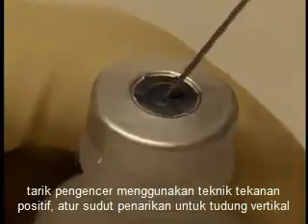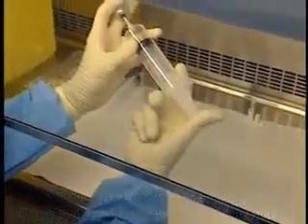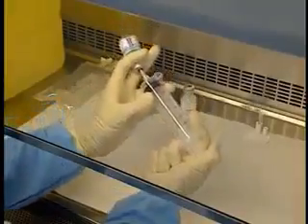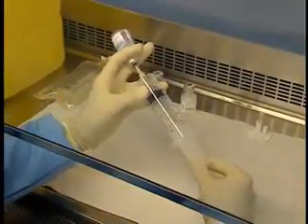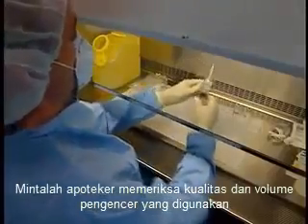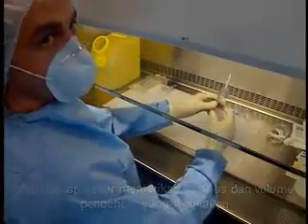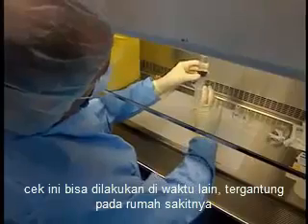Withdraw the diluent using the positive pressure technique, adjusting the withdrawal angle for the vertical hood. Have the pharmacist check the quality and volume of diluent used. Depending on the hospital, this check may be performed at another time.